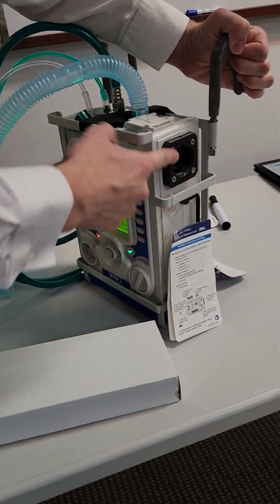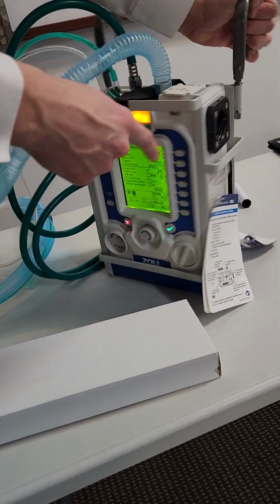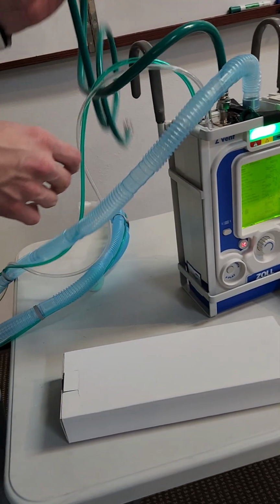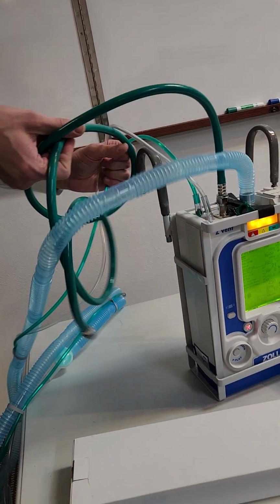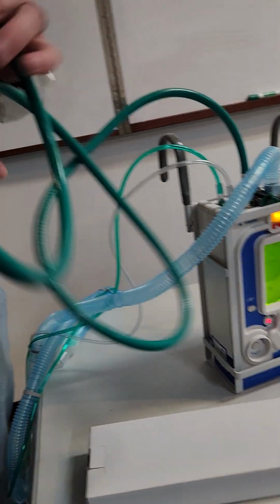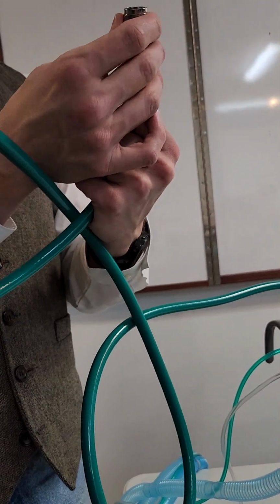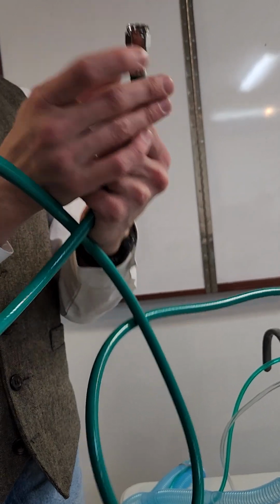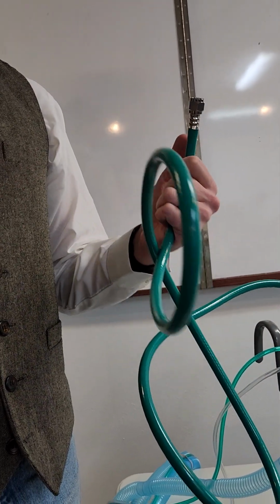Set up. This is the air intake for room air for blending in, and then you've got your hose for oxygen. The problem with this hose that I've come to find is that the area for which you grab on to remove it or put it on when it's under pressure is very small. So it's ideal to have a wrench or something like that on you.